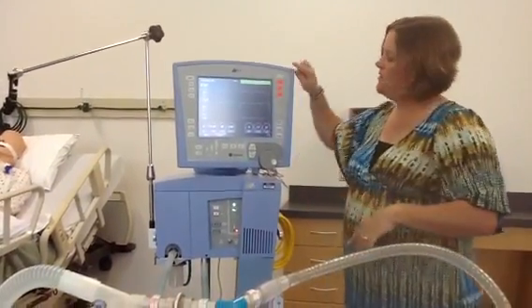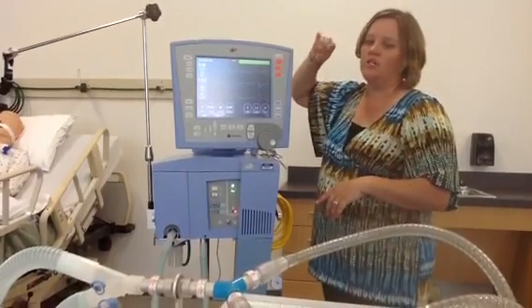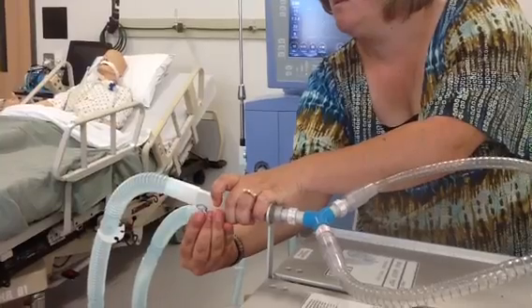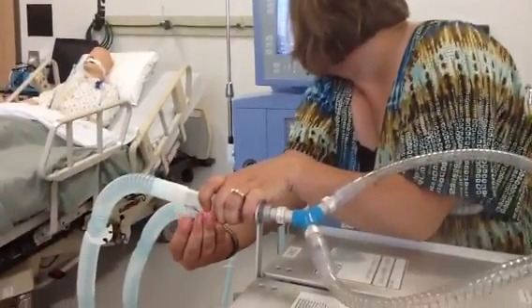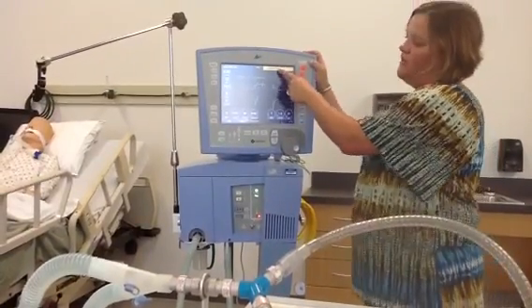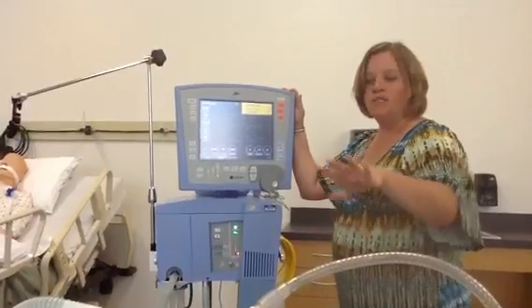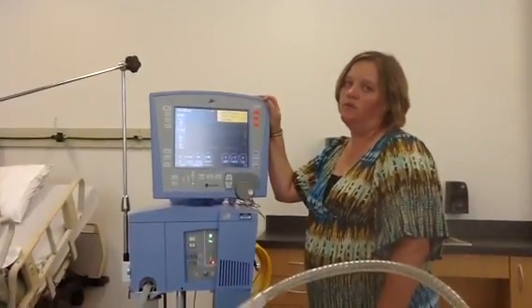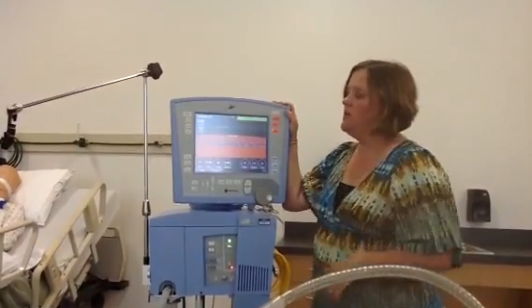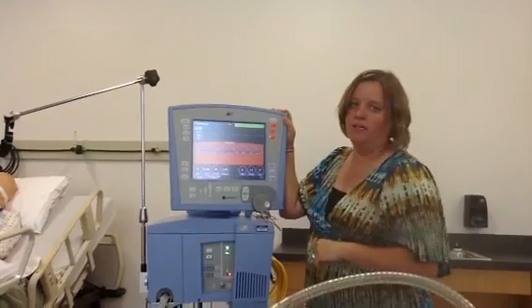Moving across to this area — starting at the top — if an alarm went off on the ventilator, you would see the alarm status and indicators up here. We also have a list of alarms that went off during the alarming period, so if you came in and the alarm had reset itself, you'd see which ones went off. The alarm reset button lets you reset those alarms. The alarm limits section is where you can set all of your alarms for patient safety. There are a lot of different alarms — definitely another in-service topic.